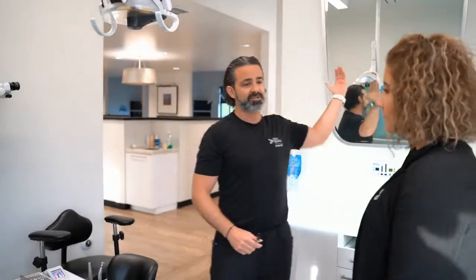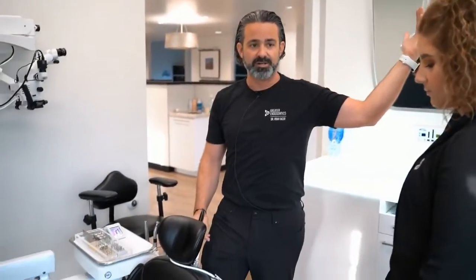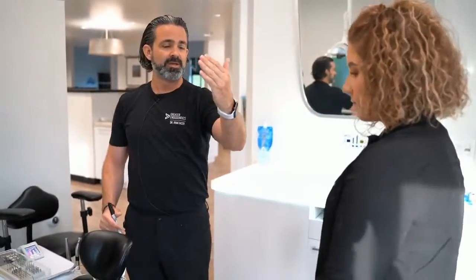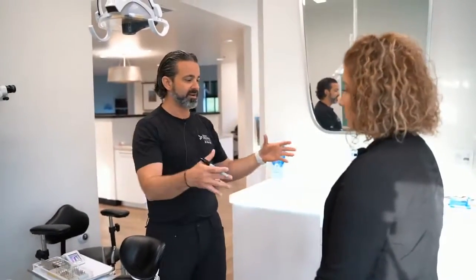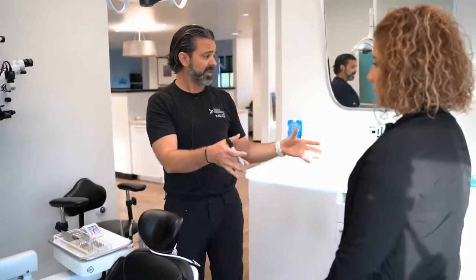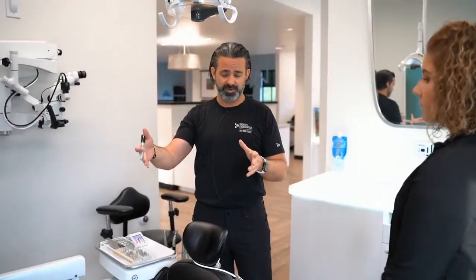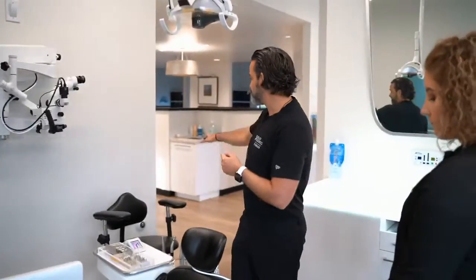If I have a microscope arm come through here and I'm working at this patient's chair, then what happens is it blocks our view. So it makes you feel kind of locked in. If I'm right-handed and I'm looking this way, then it makes sense to have it over on your right shoulder. But then you're blocked in. If you get up and move and go to another room, this is what I do.